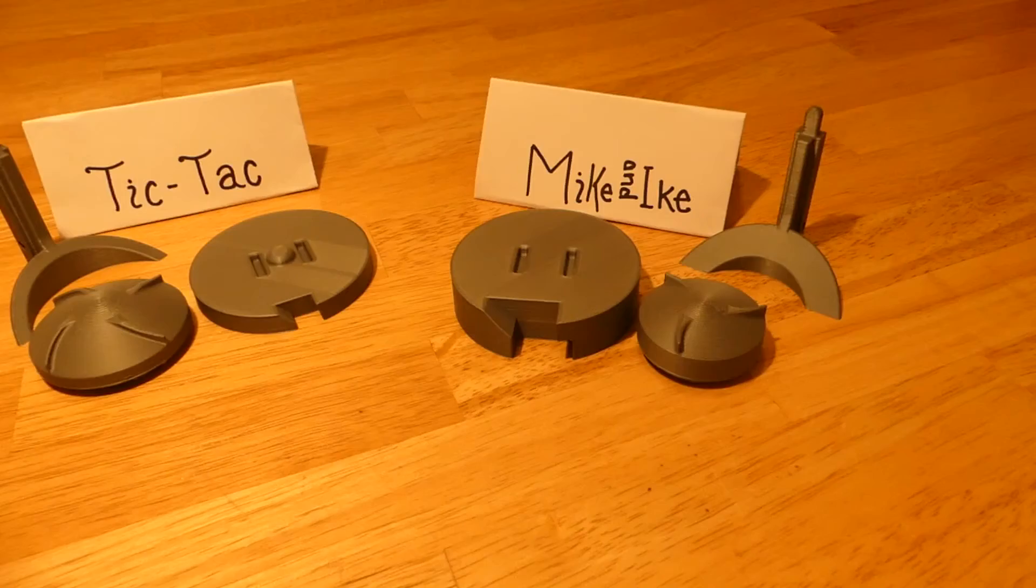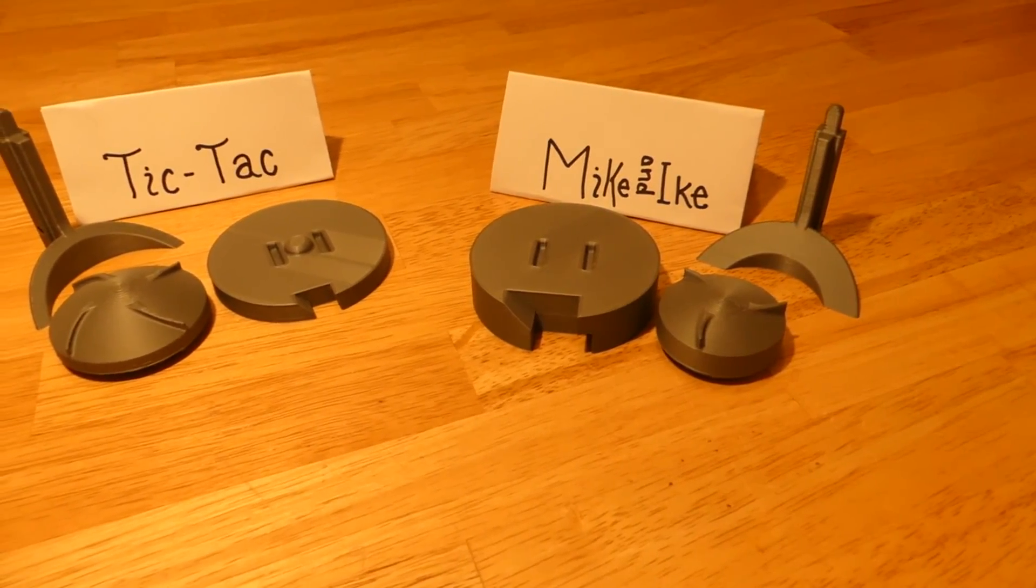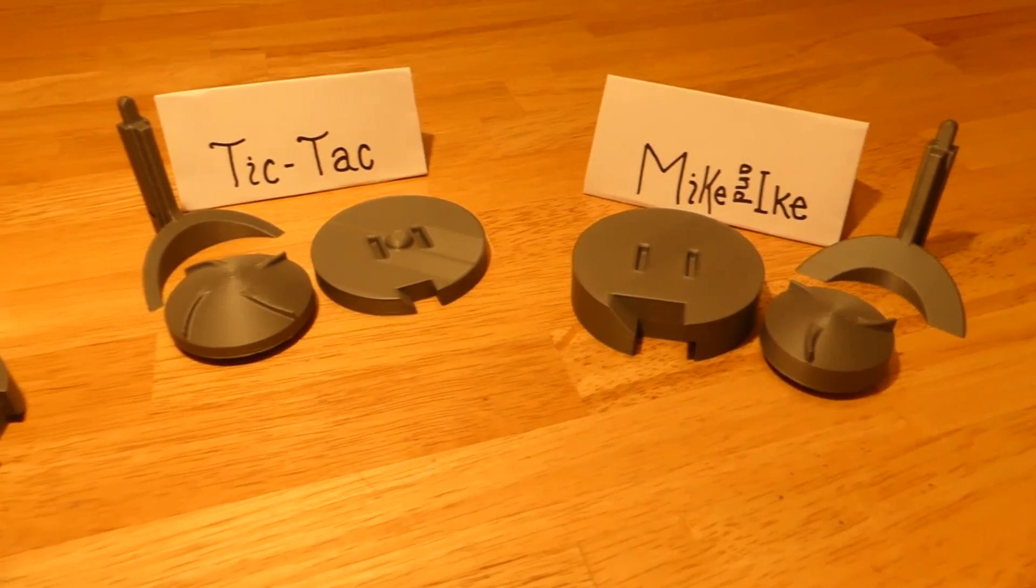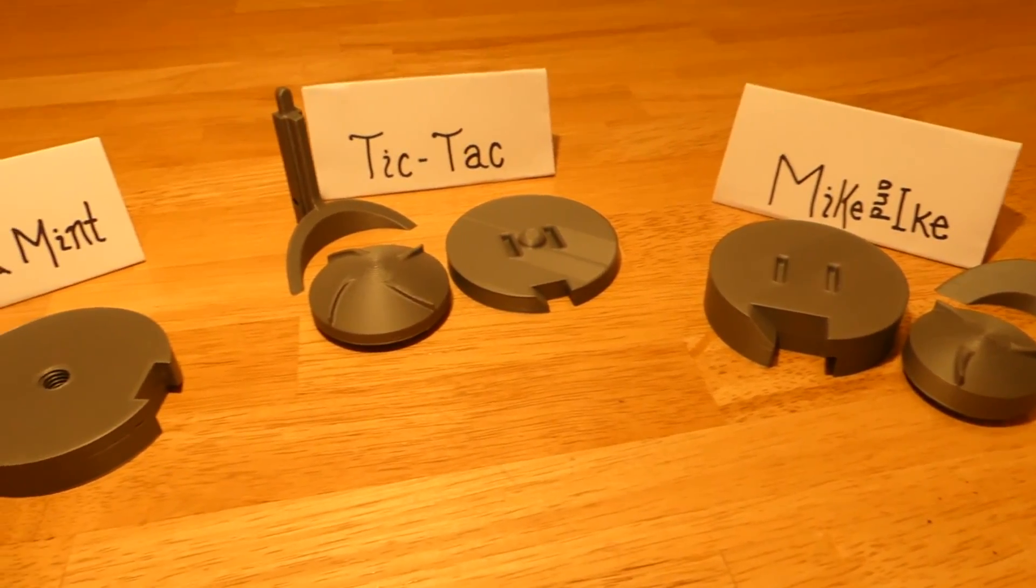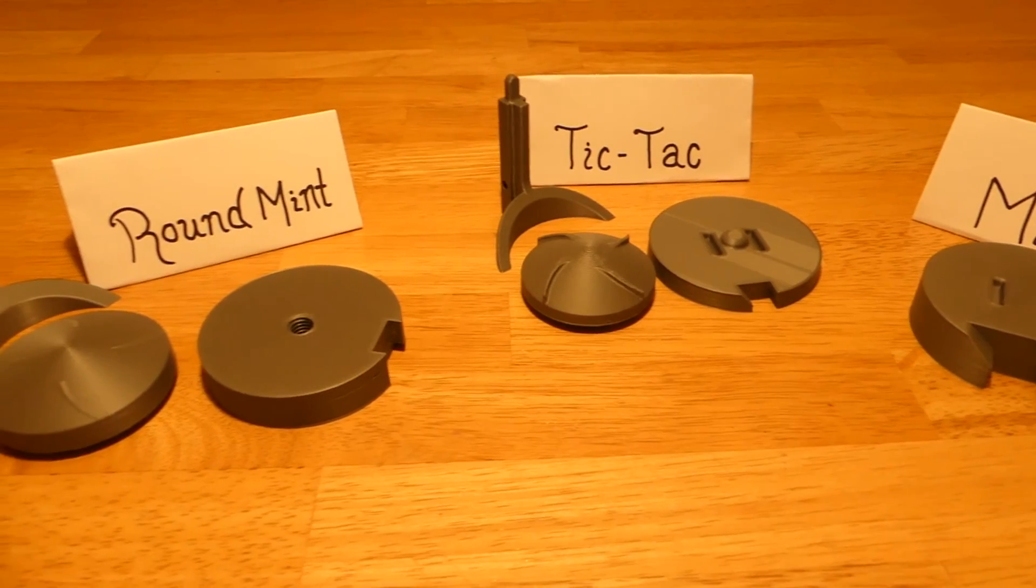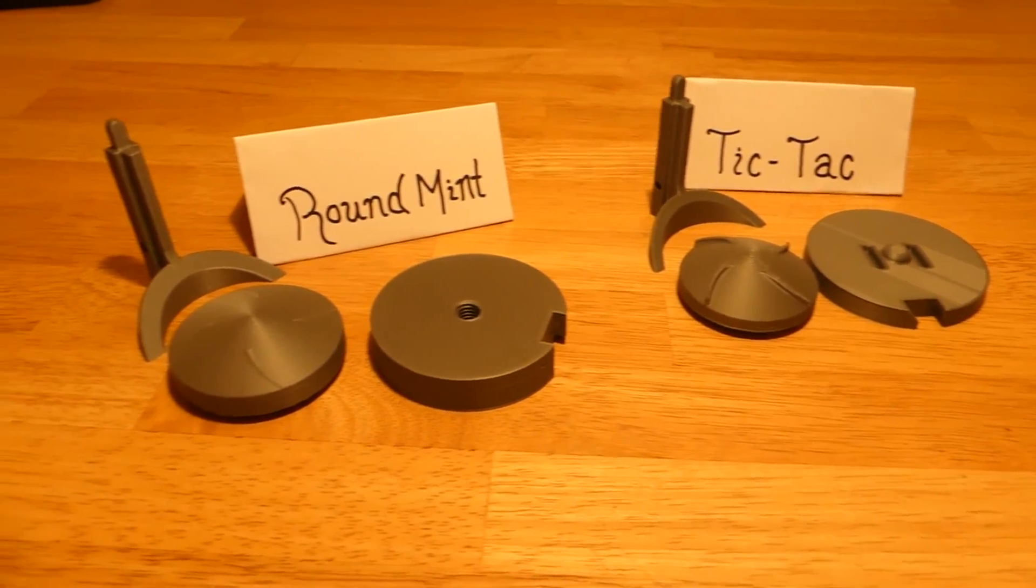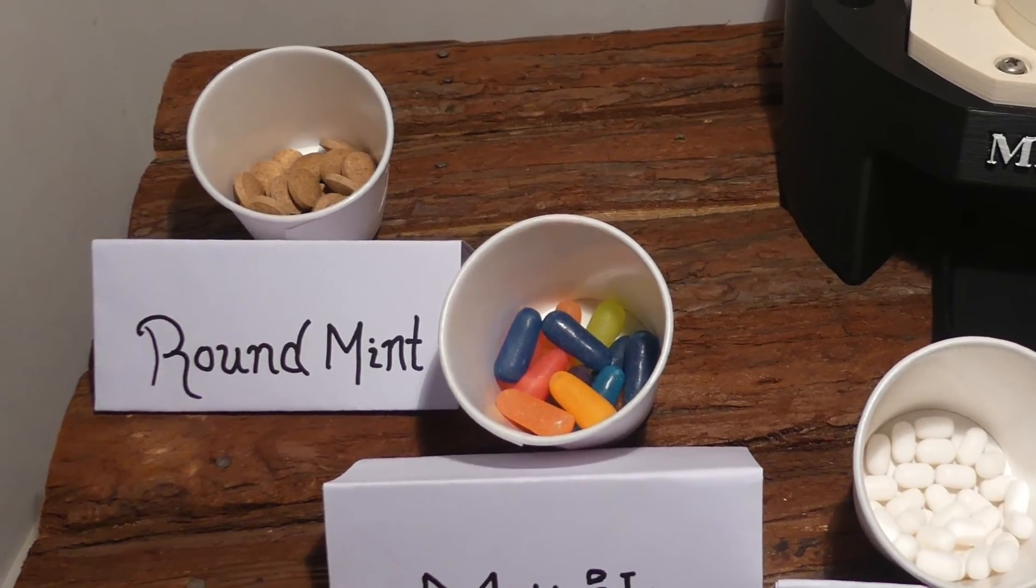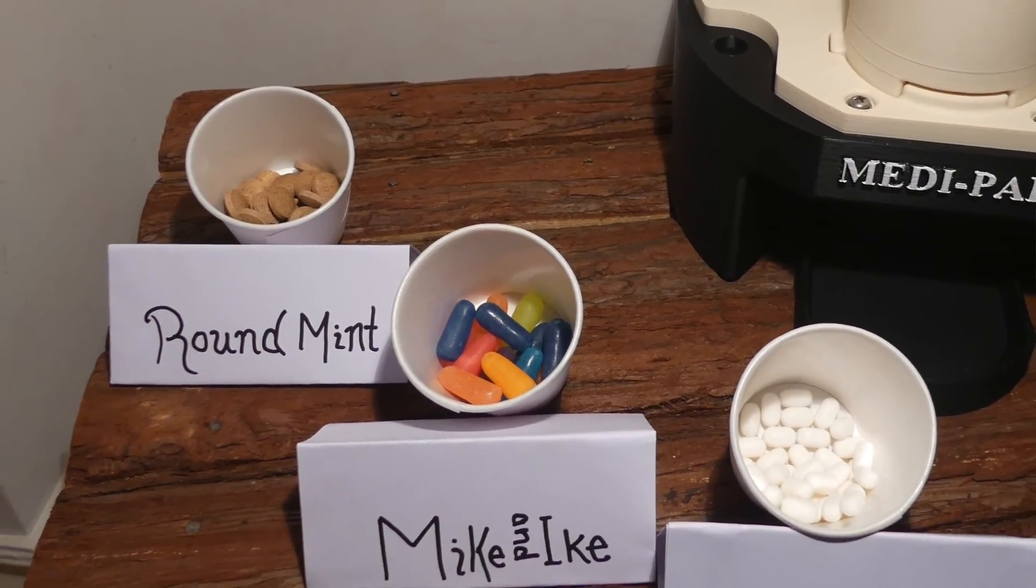As well as making the cylinders removable, we also wanted them to be identical while still having the ability to dispense any size or shape of pill. We accomplished this by designing the cylinders to accommodate different modular pieces depending on the shape and size of the pill that needs to be dispensed.